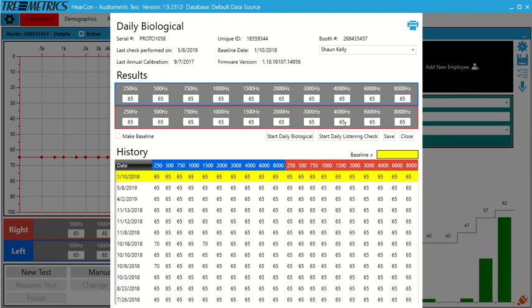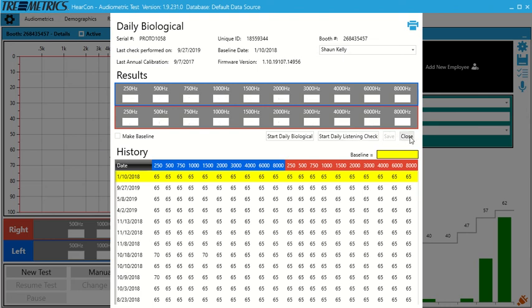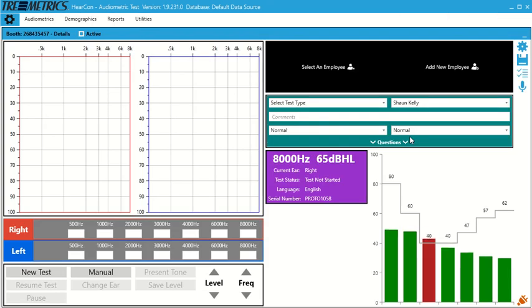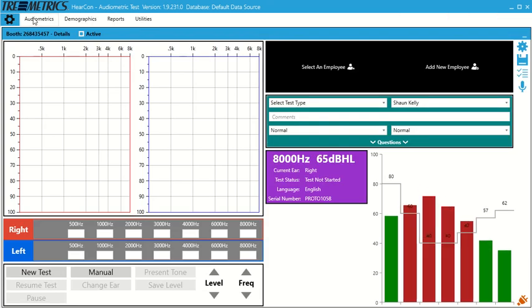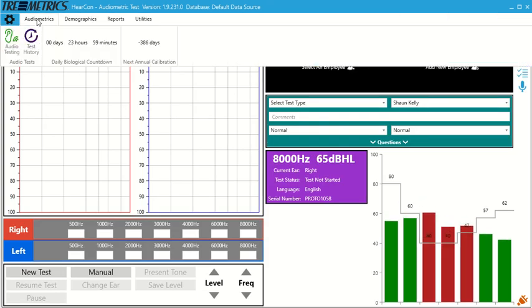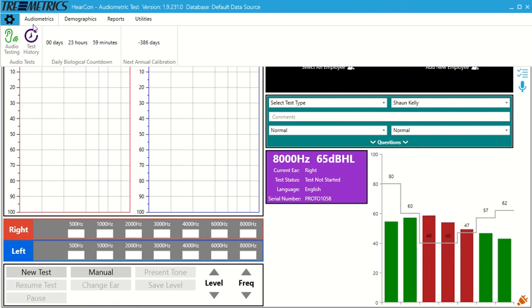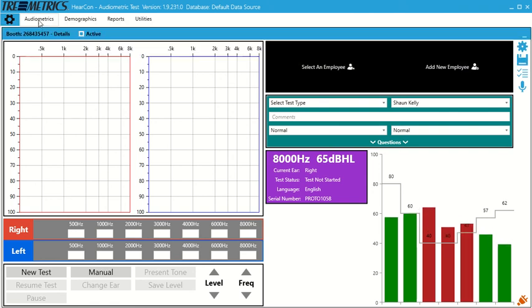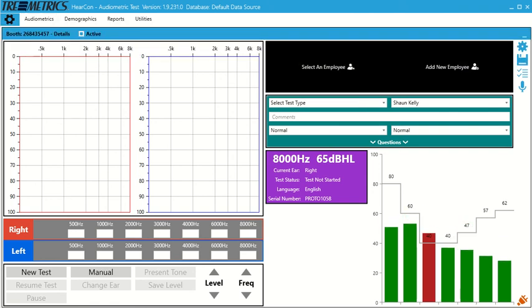So you can see now our daily bio is done. We can click save. Close. And if we go to audiometrics, you see the counter reset. So that's the daily bio function in the RA-660.